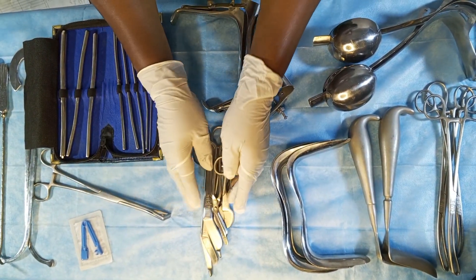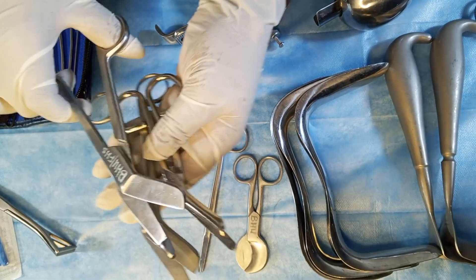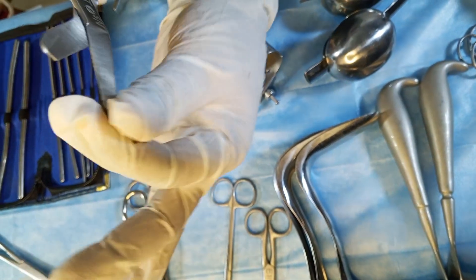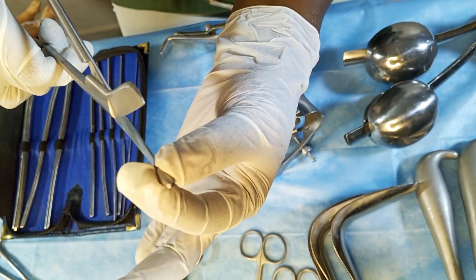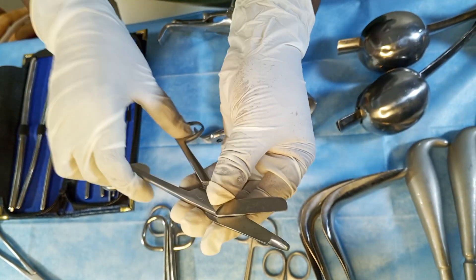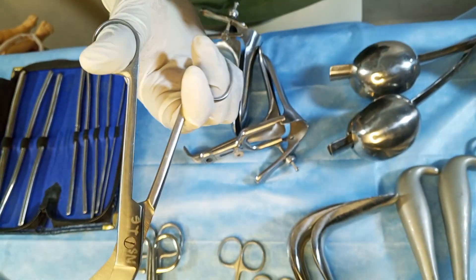Let me start with the scissors. I have different types of scissors here. These three scissors are called episiotomy scissors. You can see this blunt end — it is for you to insert through the vagina wall so that you can cut. One blade goes inside the vagina and the other remains outside, and then you cut during childbirth. This is used to incise the vaginal canal.